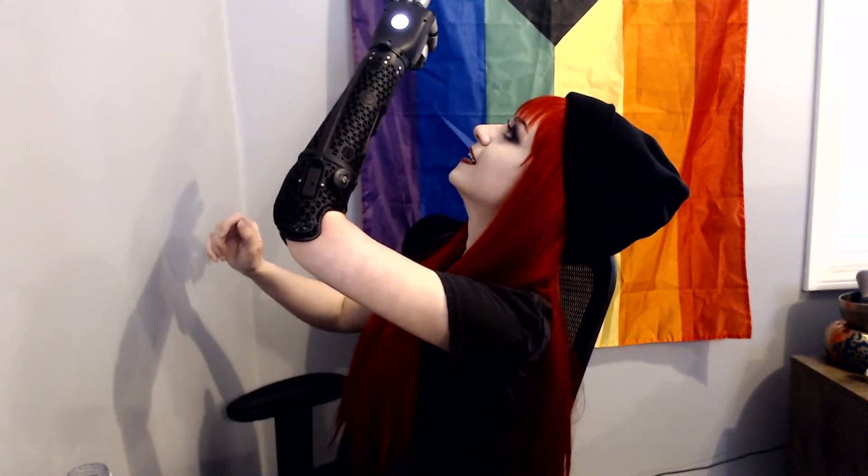Another huge reason why I don't wear this is that this is as close as it can get to my face — I can get my elbow at a 90-degree angle, and that's it. I cannot drink a glass of water, I can't do my makeup with it, I can't eat. So it's not useful for those things. It is water resistant, sort of, but not waterproof. If I put a glove on it I could use it to do the dishes, but I'm not able to sustain the weight of it while I'm trying to do a task like that.